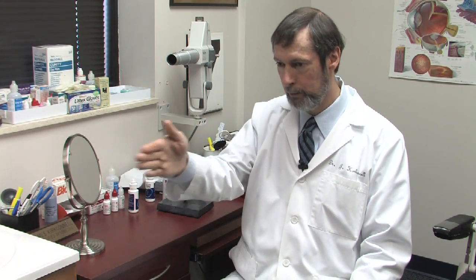You open your eyes wide and you pull and you blink. You want to catch that in your hand, or you want to have yourself over a table where you're not going to lose a lens. If you are a hard contact lens wearer and you're having trouble getting yours out, that is a better way because when you look towards your nose, you just have more of the lids to go ahead and help lift it off.